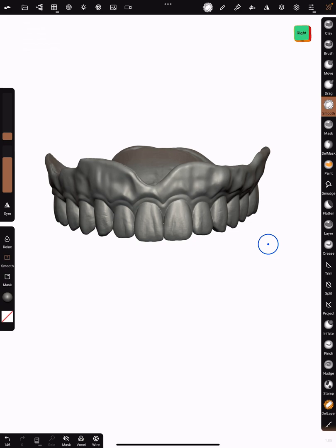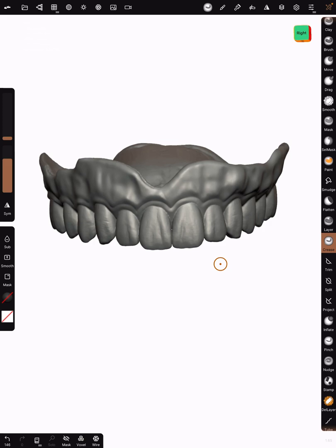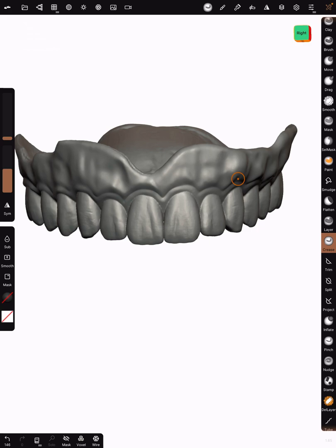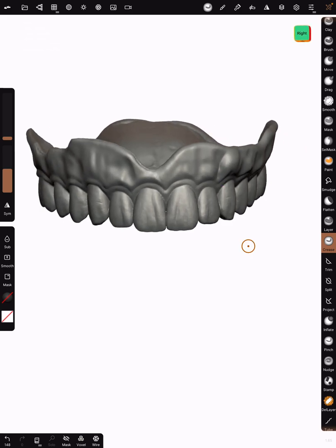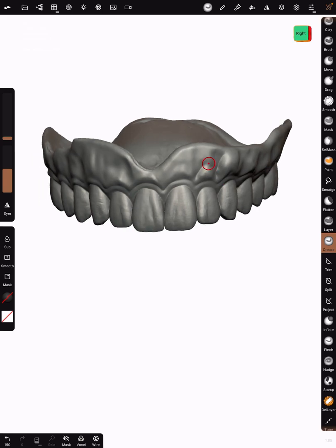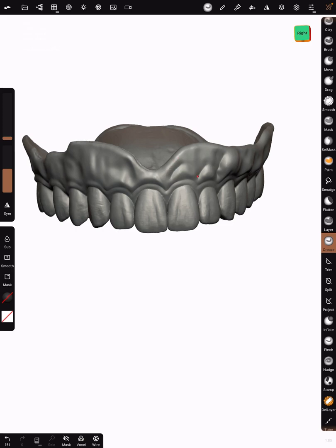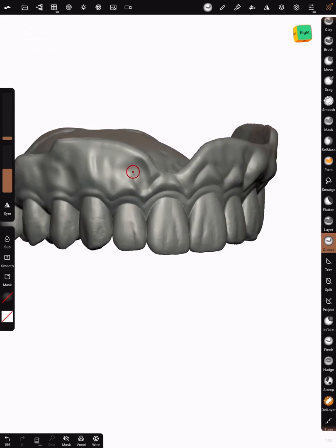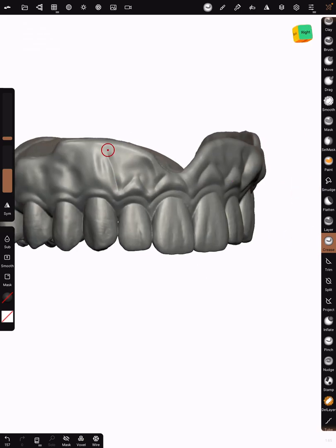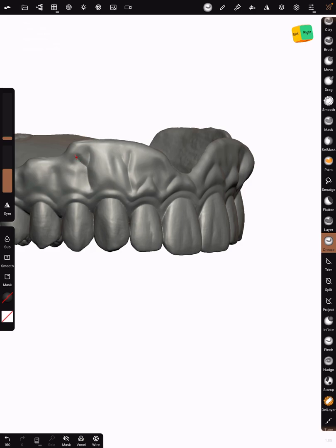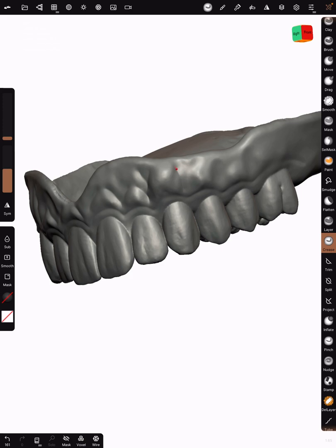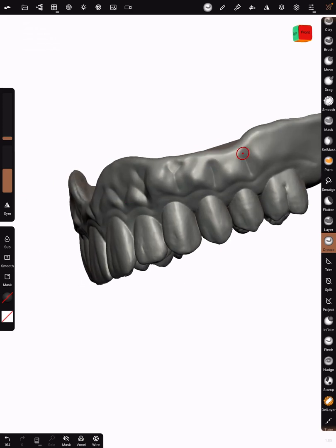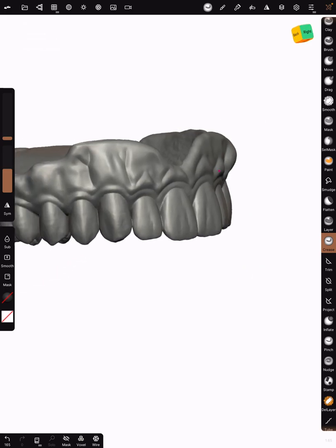Now that we have that established, we're going to actually go back to crease. Crease is one of my favorites. We're going to decrease the intensity a little bit, maybe halfway. Size is still at 20. Now this is where you can get kind of crazy. Now I'm going to create a Y right there. I'm going to create a triangle here, like that. I'm going to create a triangle here, bigger triangle. Once again, triangle here. Little triangle comes to a sharp point there. A Y right here. Here is also a Y. Behind the distal to the cuspid, so once again we have a Y like that. And then usually just some lines back here that we'll smooth out later.